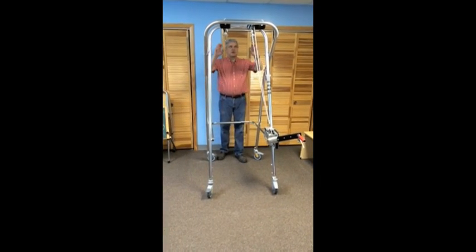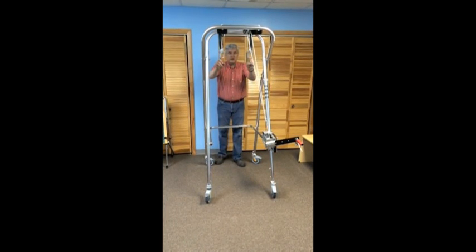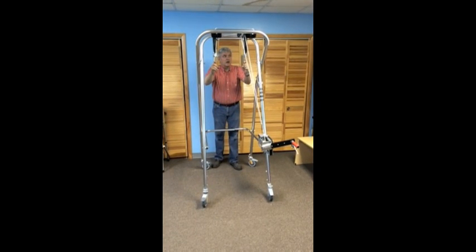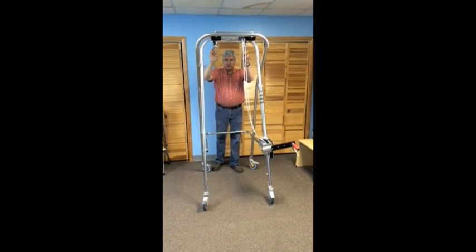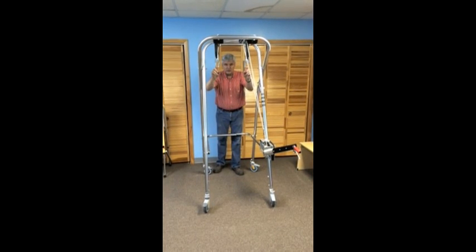Other features of the SW7 are that it uses, at the top, automotive seat belt retractors — the same ones found in cars that meet federal safety standards. We also use heavy-duty pulleys. The weight capacity that these units will support far exceeds the rated 250 pounds.